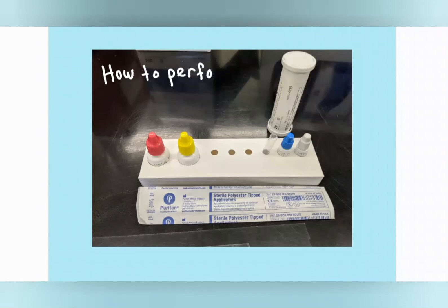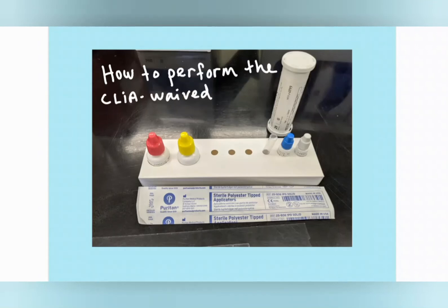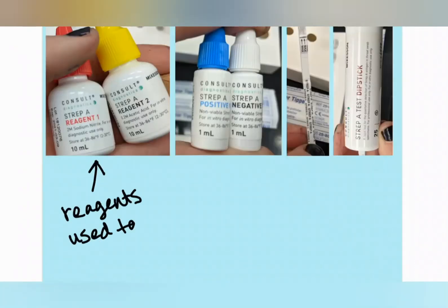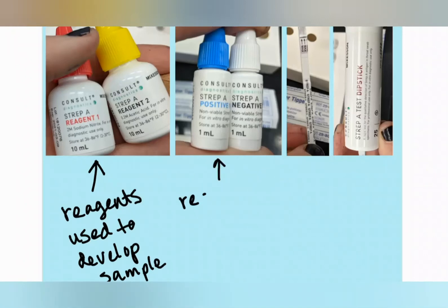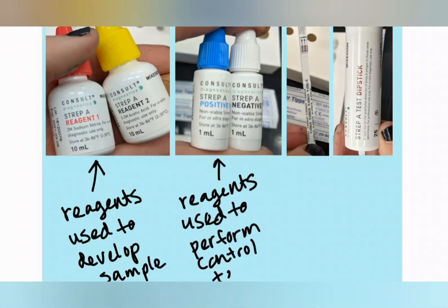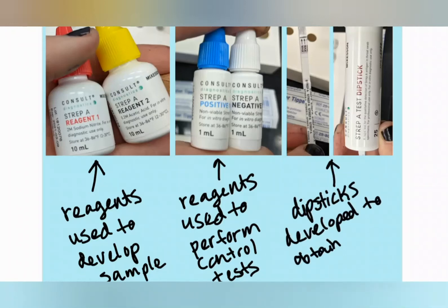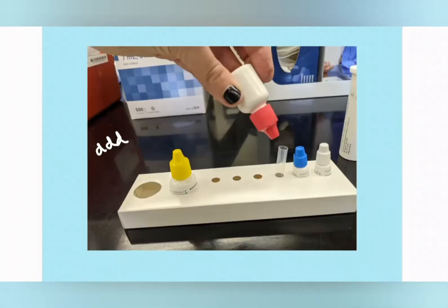Here we have one of the test kits from the lab, and I'll spend the rest of this video doing a summary of how to do the procedure. Each kit will have Reagent 1 and Reagent 2, which are used to create the solution that you're going to develop. Positive and negative control solutions are included in each kit, and you'll also have a vial of dipsticks that will be developed to obtain a positive or negative result from your sample.